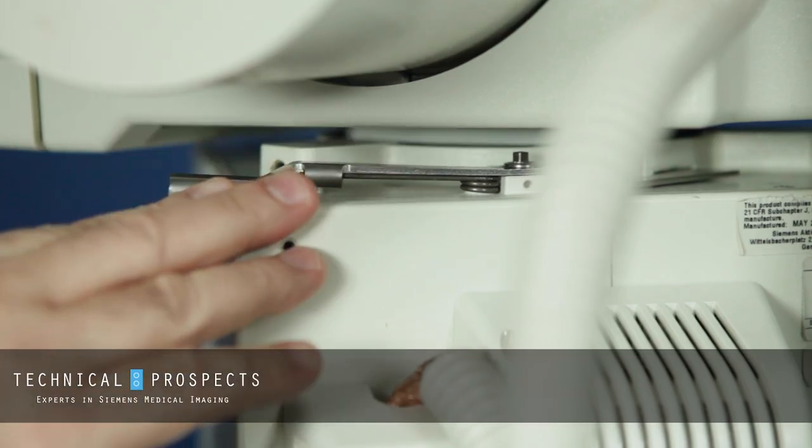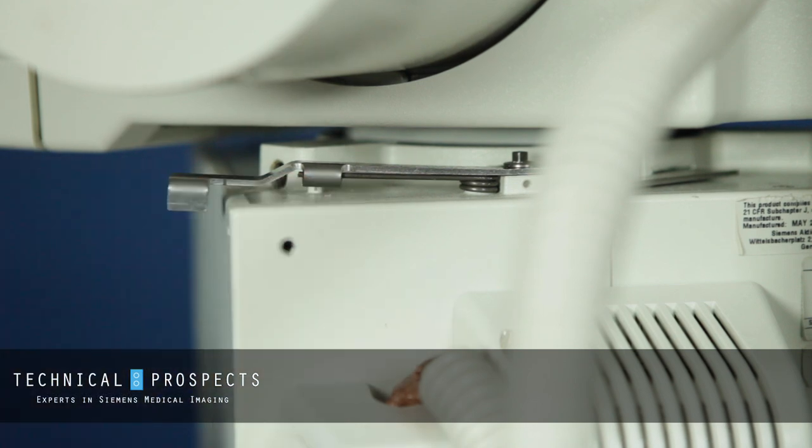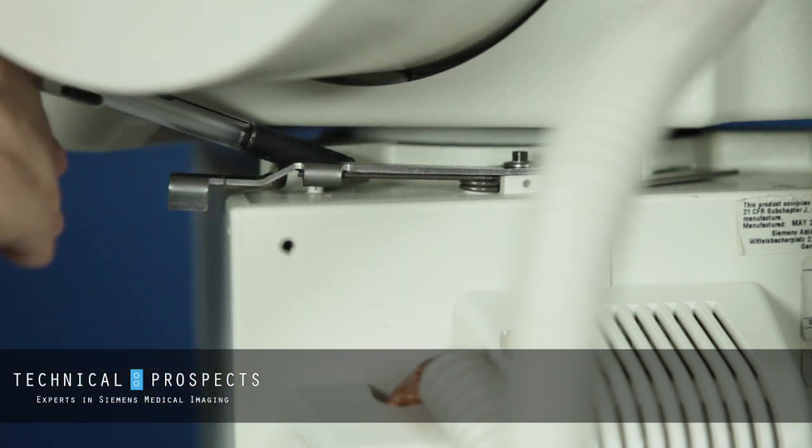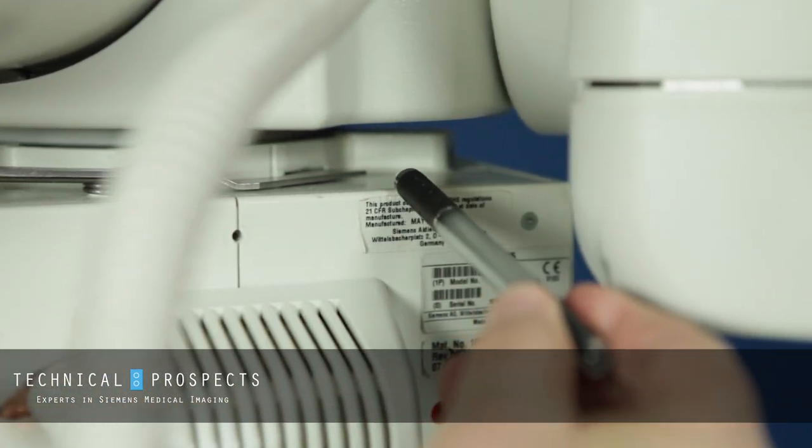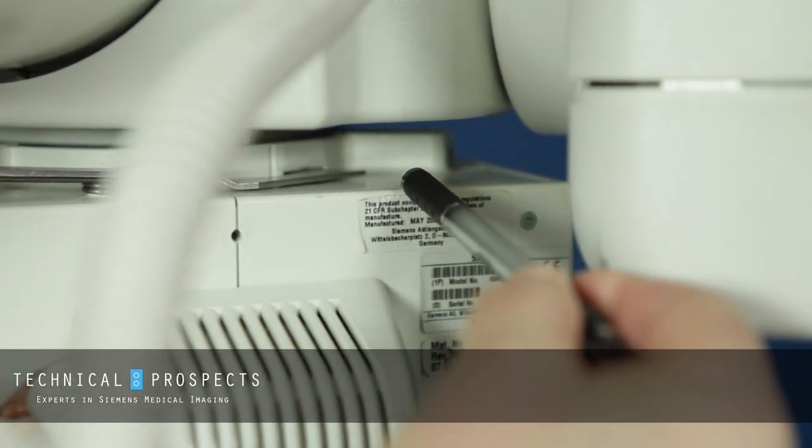This is a newer style collimator and they've relocated the set screws. The first one is back in this corner, and the other one is over here, but they still basically follow the same function.